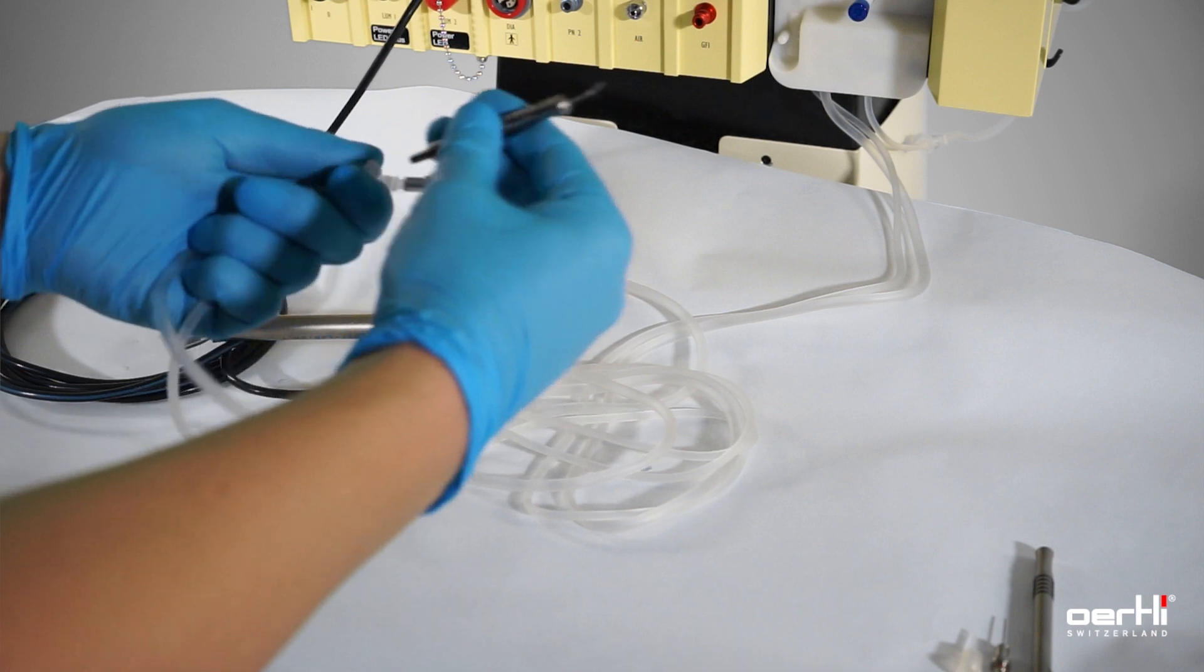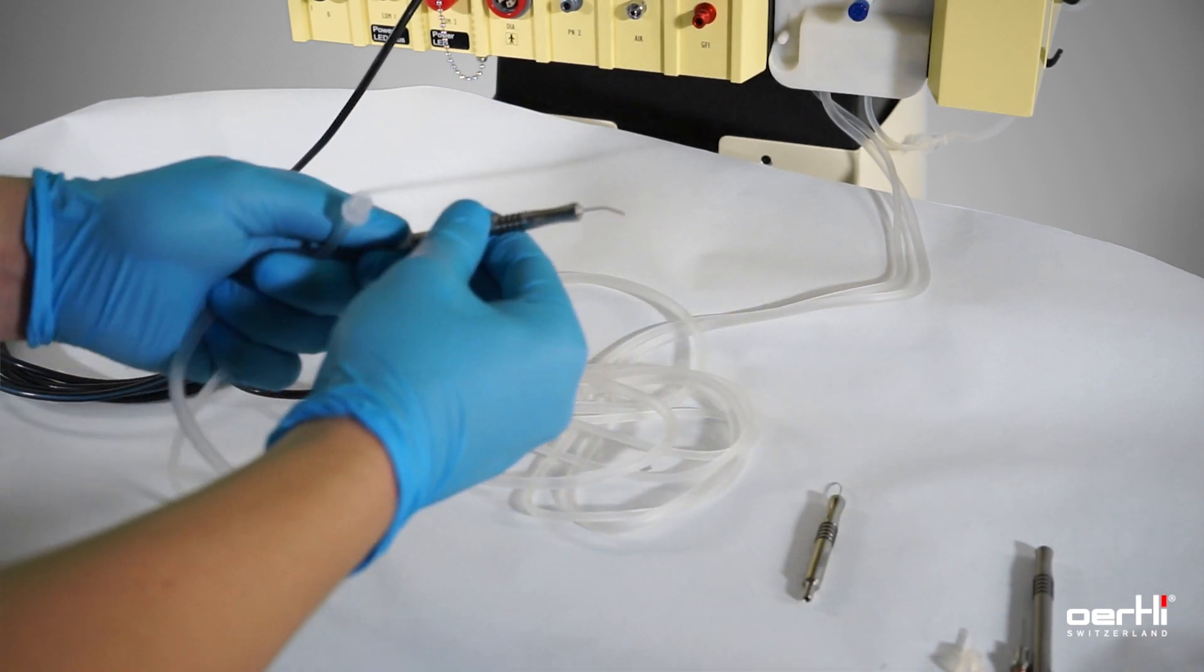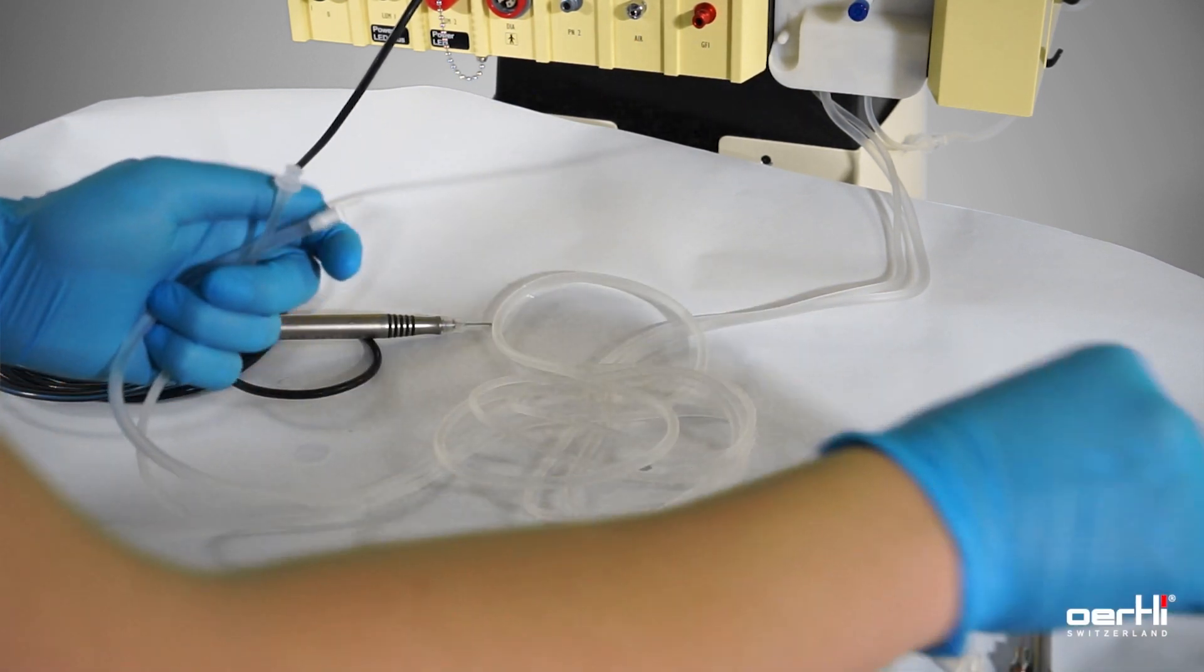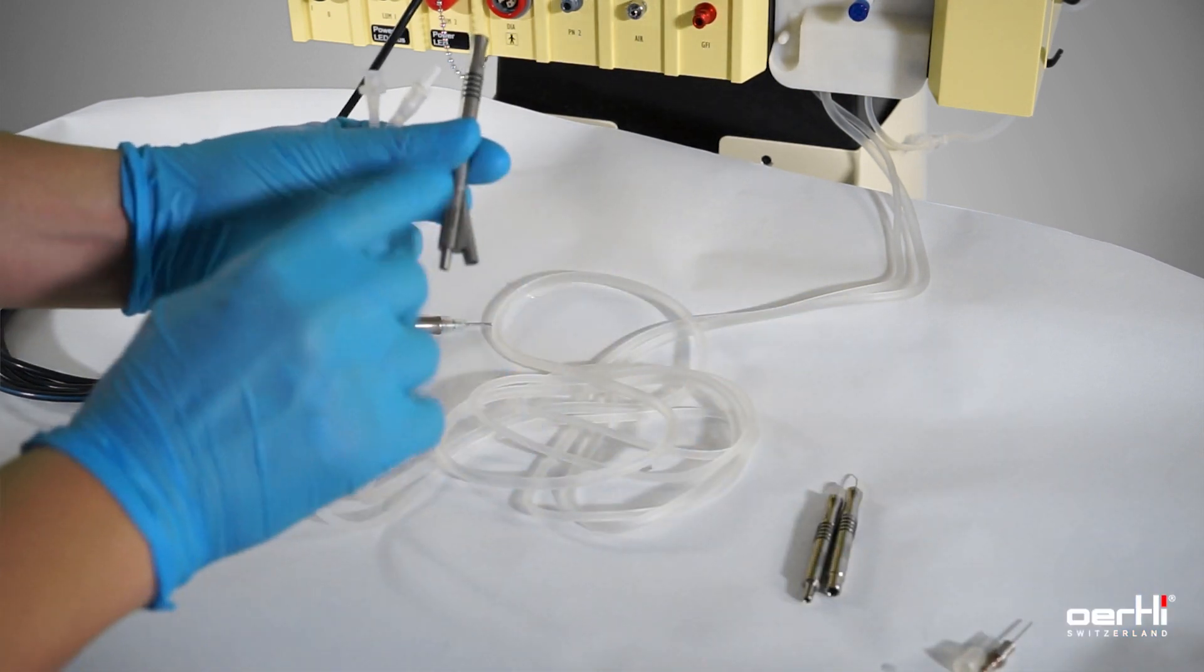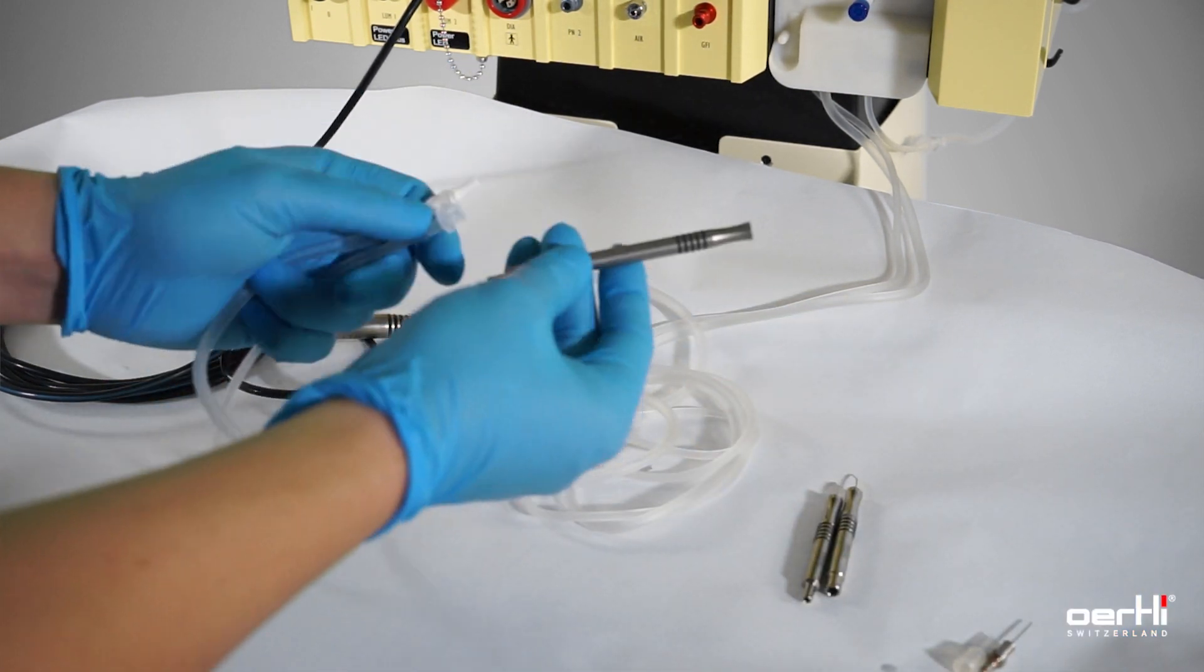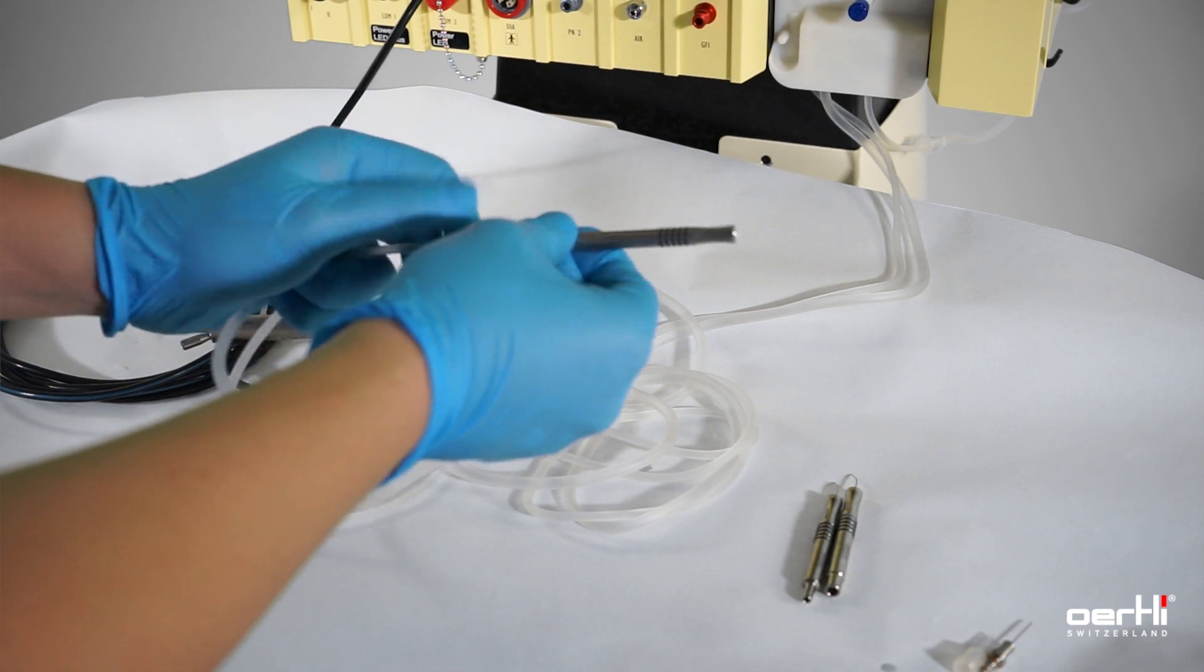Or if you prefer a coaxial treatment, you use the coaxial IA handpiece, irrigation aspiration.